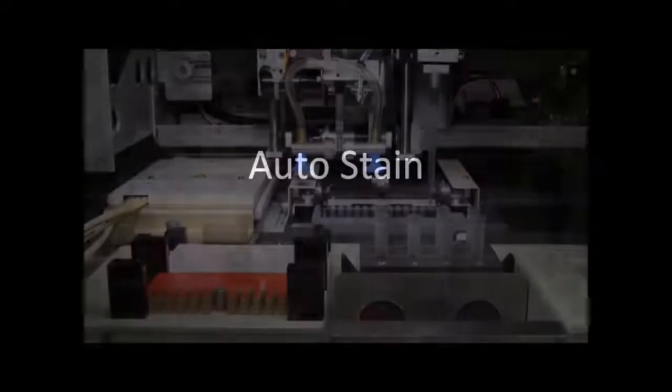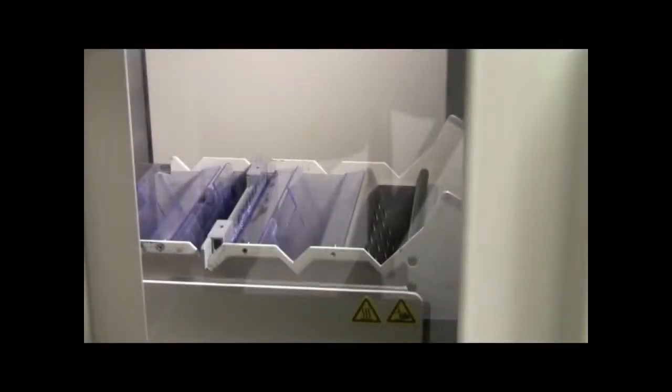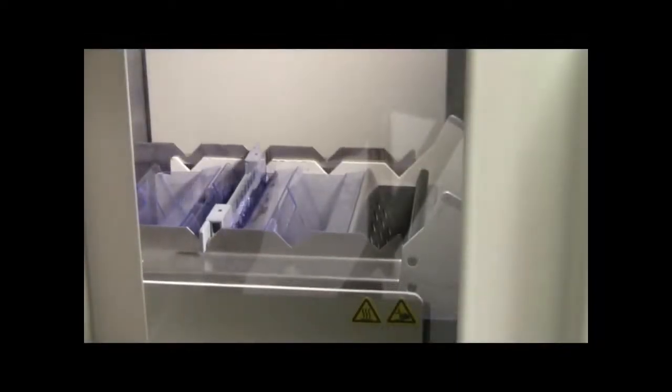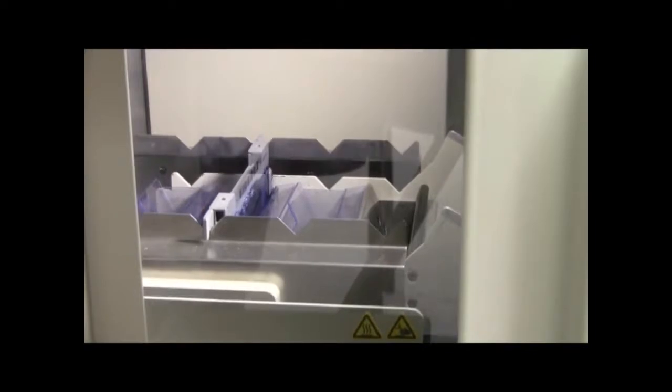After anti-sera development, the gel is moved into the auto-stainer. In the auto-stainer, the sample is stained and cleared and then moved into the densitometer.